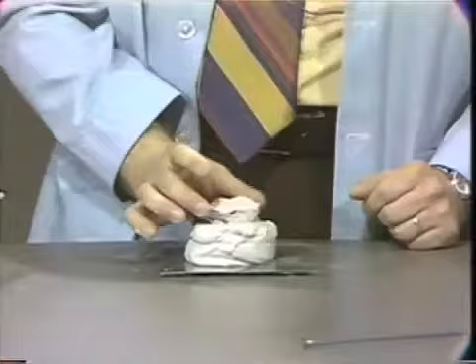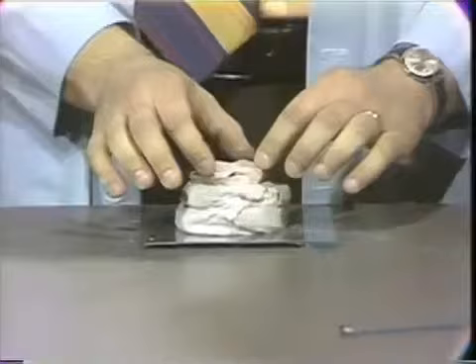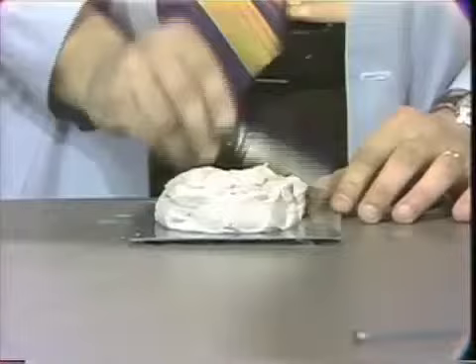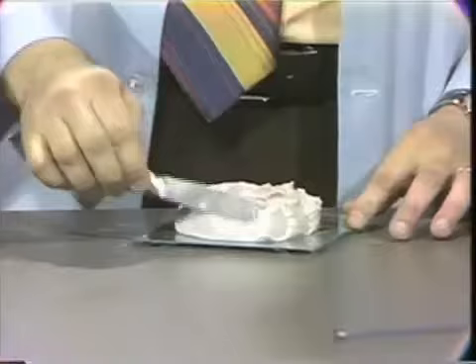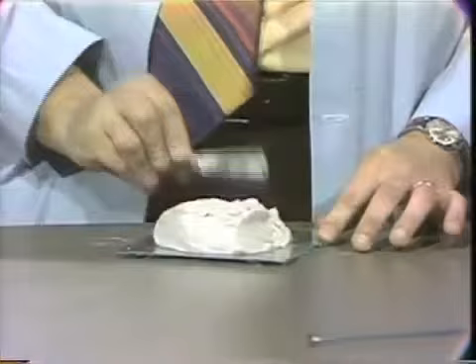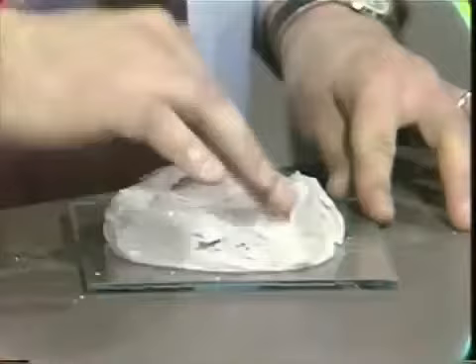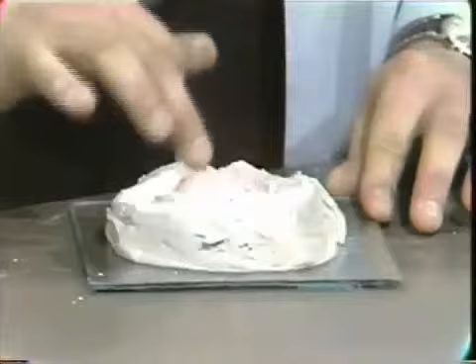This method has certain advantages when rubber base is used. Again, we place a large amount of material on our glass plate and simply press the impression down into the material, trying to make certain that the residual ridge is parallel to the tabletop. At this point we again pull the material around the impression — you have enough time to work, you do not have to rush. Then take your finger and begin to establish where you want to place the boxing edge. It's very simple to do this with a maxillary impression; it's a little bit more difficult with the lower because of the tongue space.